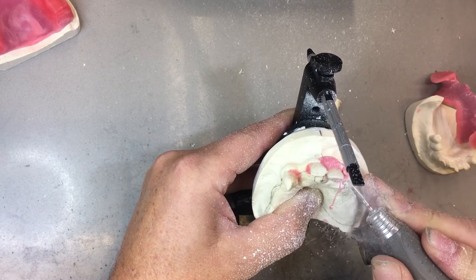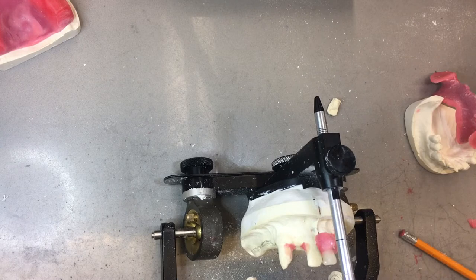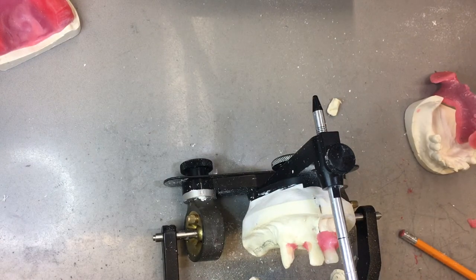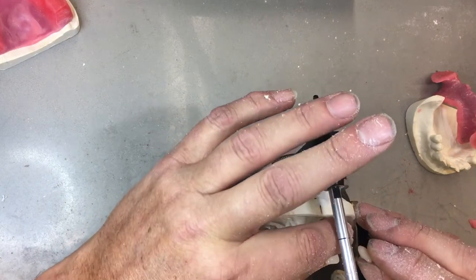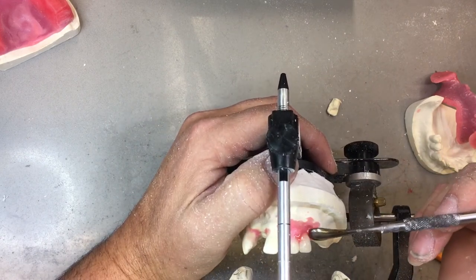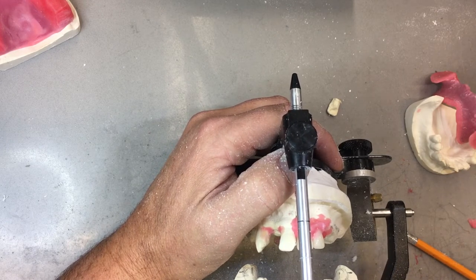If I err on the slightly larger side, it's fine, because we know what's going to happen post-surgery. After the patient wears the denture for one week, they're back in the dental office. Any adjustments are alleviated if there are denture sores. Then the patient is given a tissue conditioner — which is a soft reline, like CoSoft — the most popular brand. A soft tissue conditioner is put inside the denture and the patient would wear that for three weeks, and subsequently every three weeks after that for roughly the next three months, it is taken out and a new one put in. As the bone atrophies, the denture is continually being relined with a temporary soft tissue conditioner.